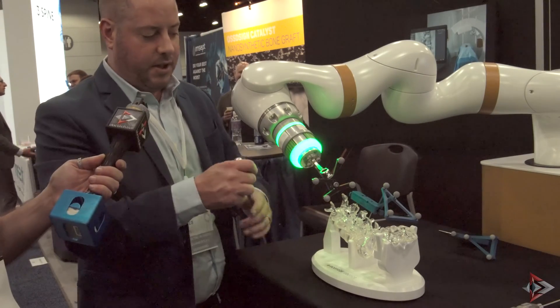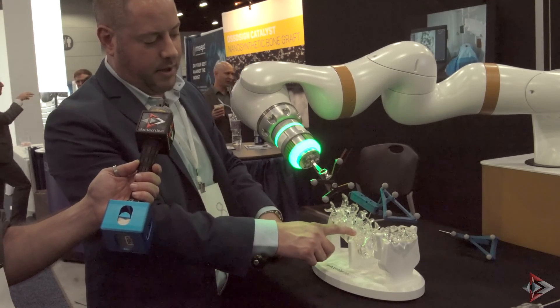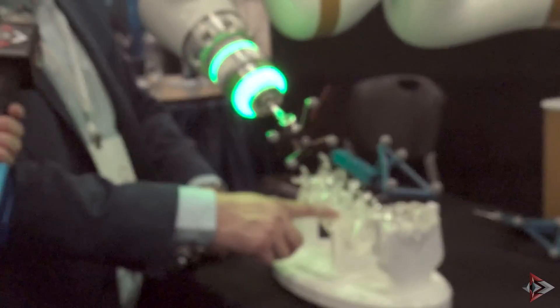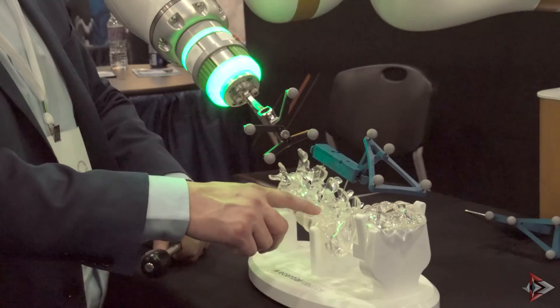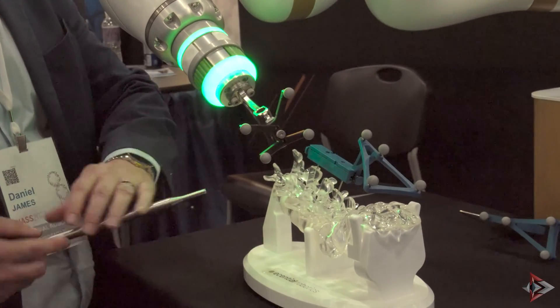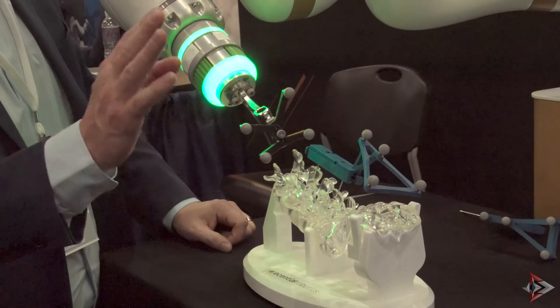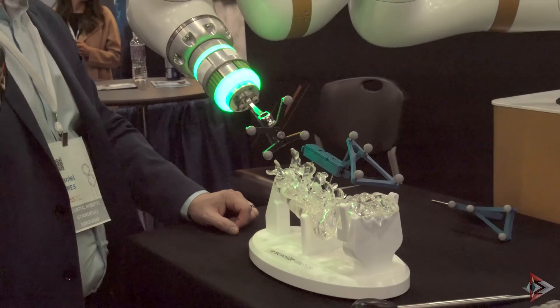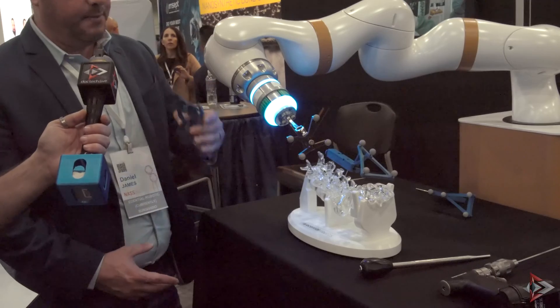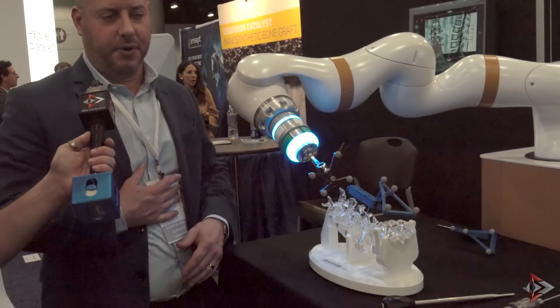As you're putting instruments in, sometimes you're laying on the anatomy. So if I press on this pedicle right here, you'll see that the robot tracks. This is what we call motion compensation. Patient breathing or any instrumentation that's pushing on the anatomy — it's going to compensate for that, and wherever it shows on the screen is where you really are. Because of the technology and this phantom, you don't have to stop respirations. When you walk out of the room and do a 45-second spin, you don't have to stop the patient from breathing.